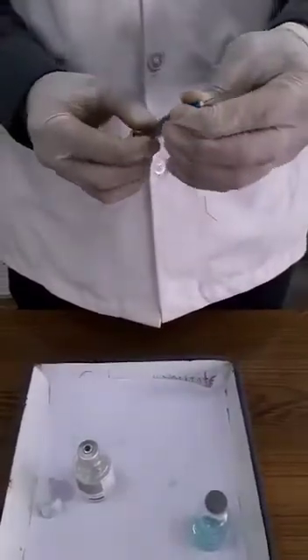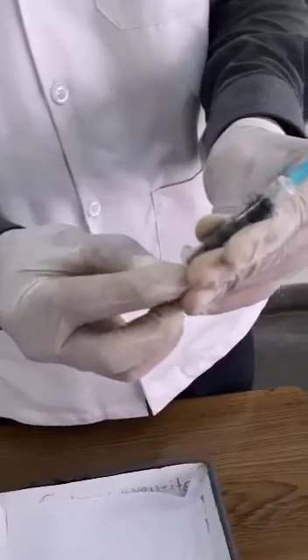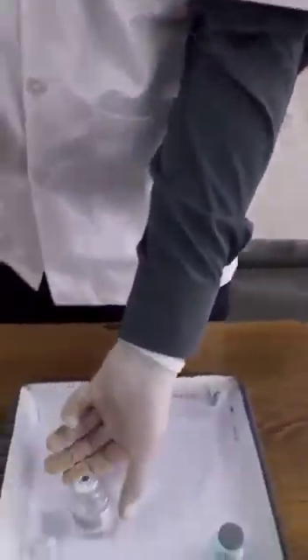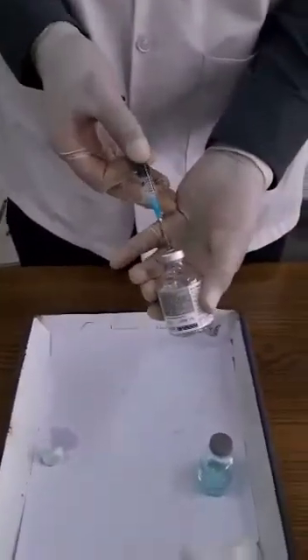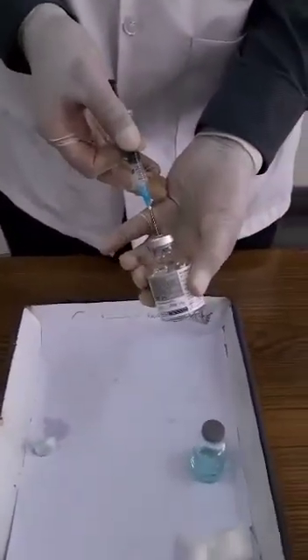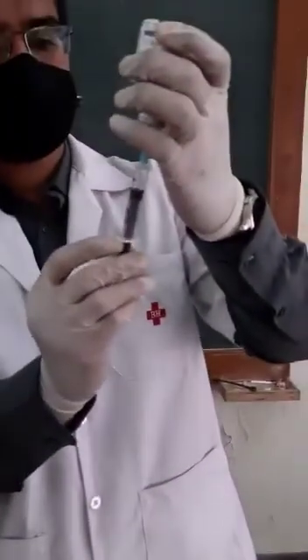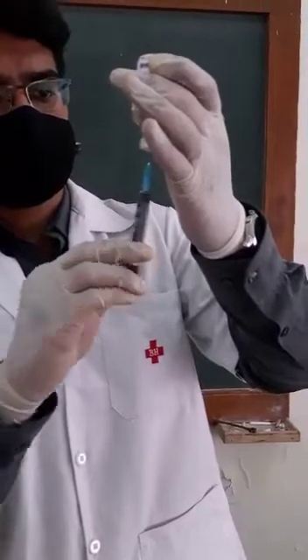Suck in air inside the syringe equal to the amount of solution which is to be aspirated from the vial. Then insert the needle on the top of the vial and turn it upside down. Pump the air into the vial to create pressure.